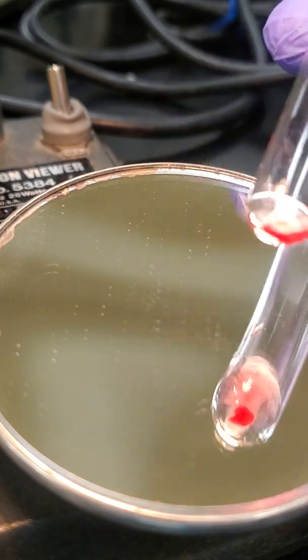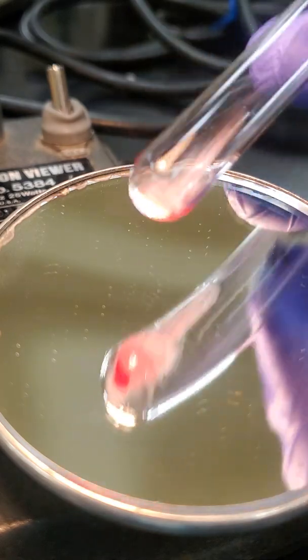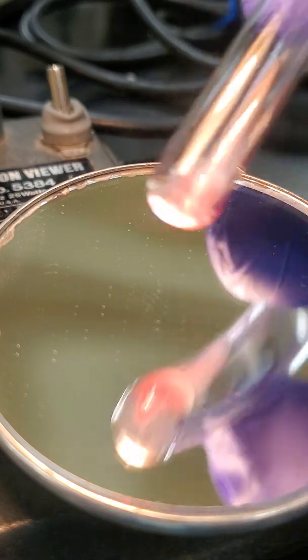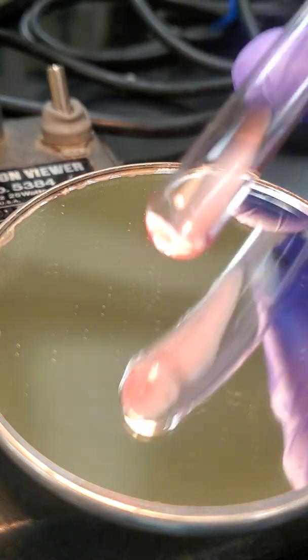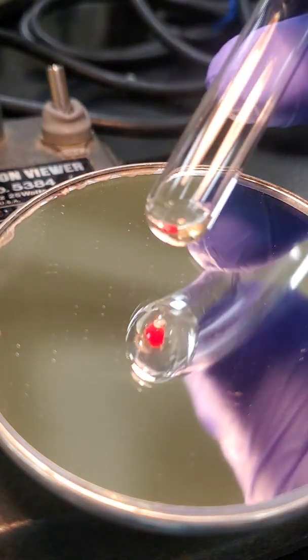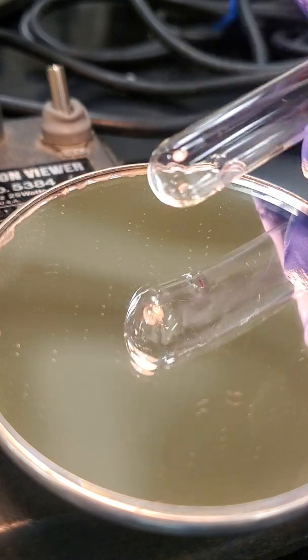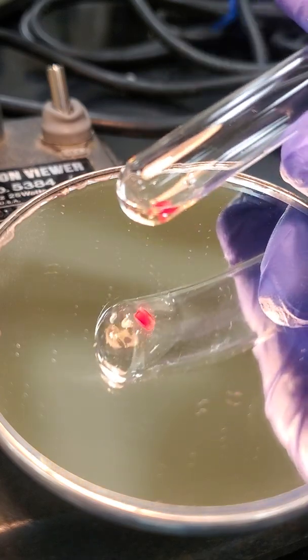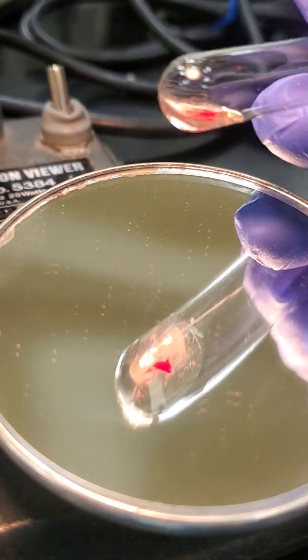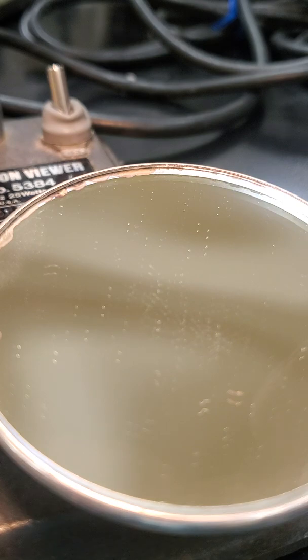And then this is our D tube. I'm sorry I didn't say that. And our reverse A cell. Reverse B cell. Okay, and that's all of our unknowns.